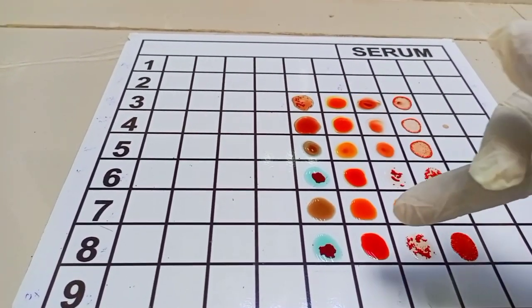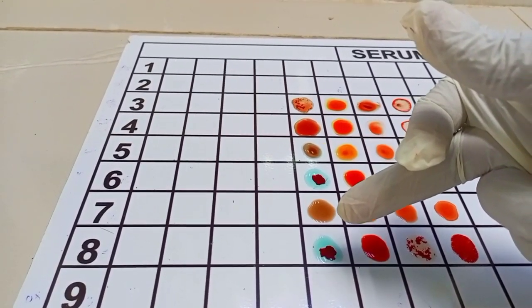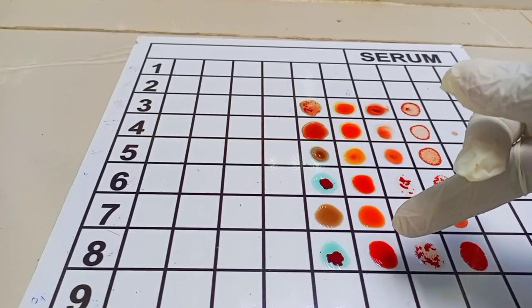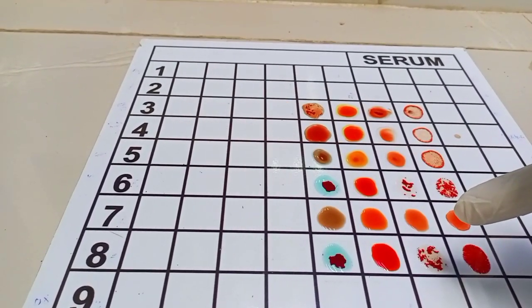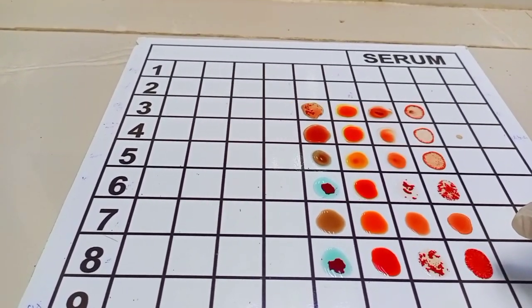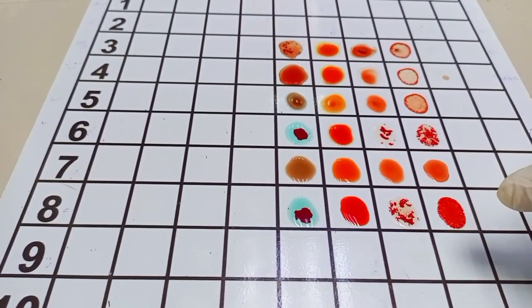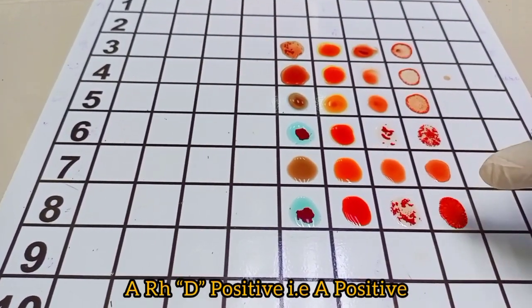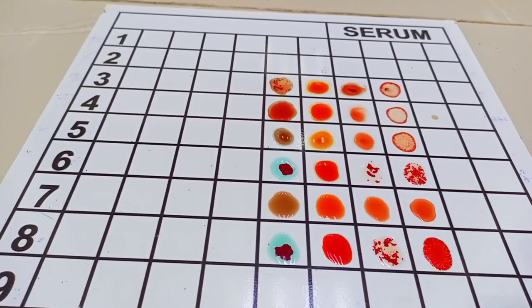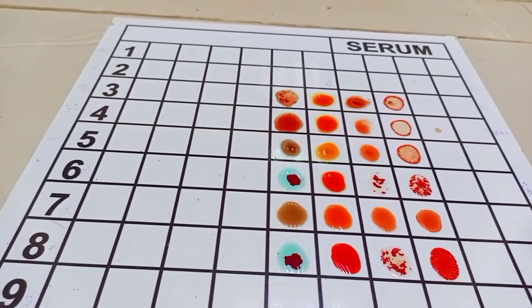And of course the second one, if you look very well, you see that on the Antisera A part there is an agglutination reaction. Then of course for Antisera B there is none. And at the Antisera AB there's of course a reaction as well. At the D part there's also a reaction. So what this means is that this sample is A rhesus D positive. Using this Antisera, one can determine the blood group of various types from different individuals.